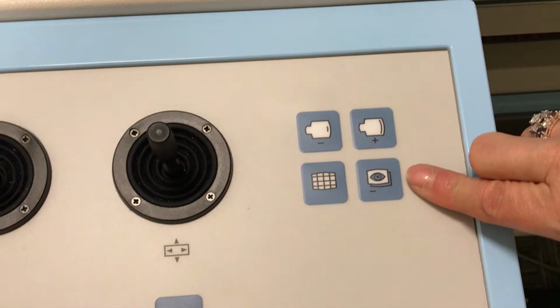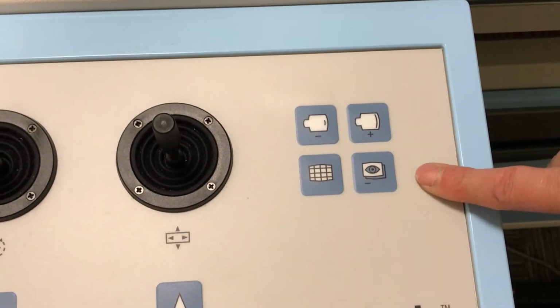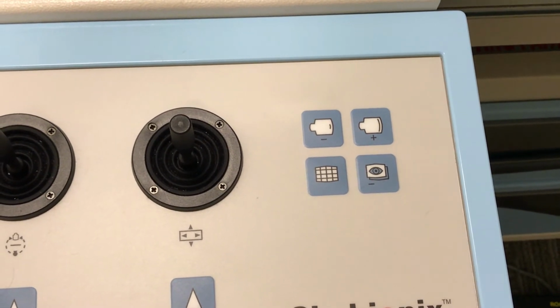This would be to clear a mask. If you did a digital run, it clears your mask so that if you move your table, it doesn't show all the motion. Great.